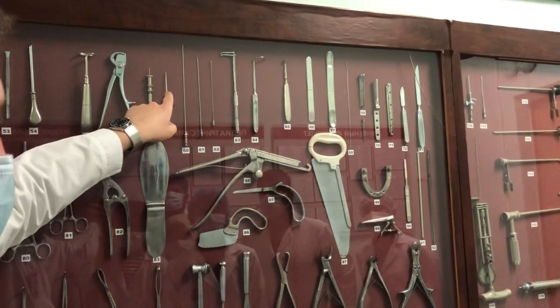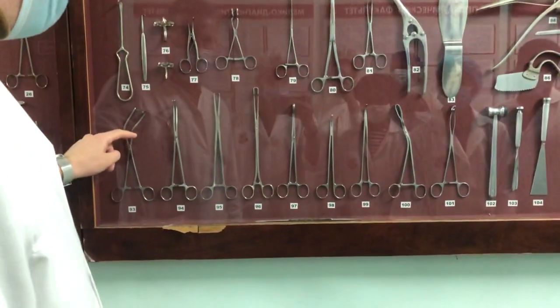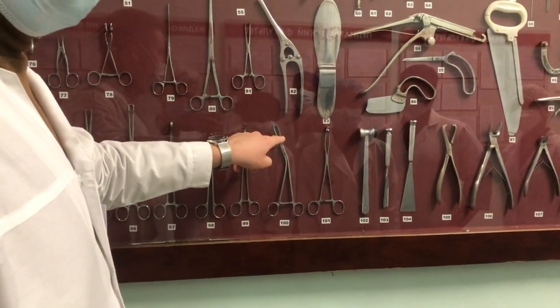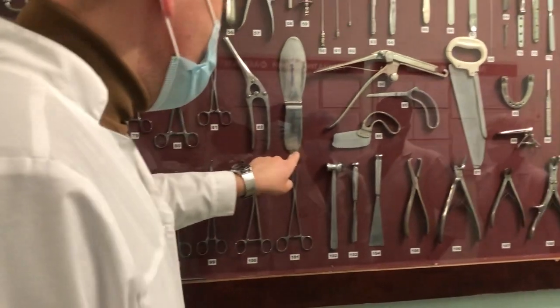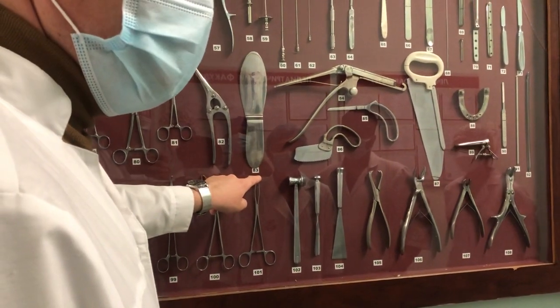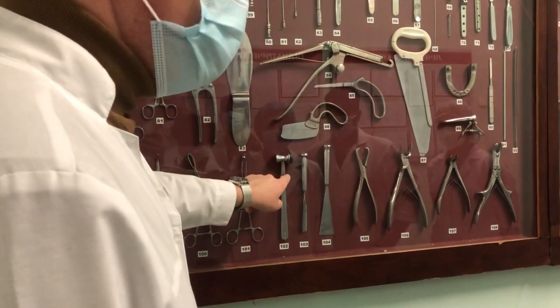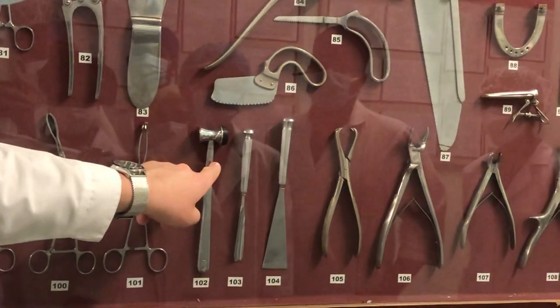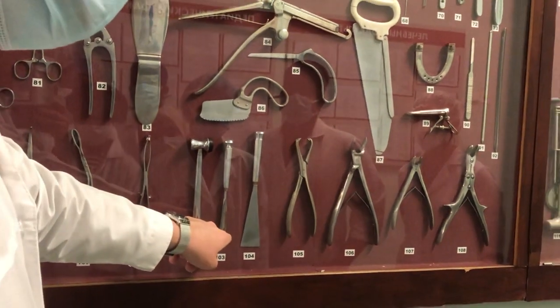Needles for punctures. Next, in the last layer, you should know this one — we studied it. And this one with a triangular-shaped window, the forceps for the lung. Surgical hammer — you studied this semester only during one operation: antrotomy. With this instrument, the chisel — groove chisel.